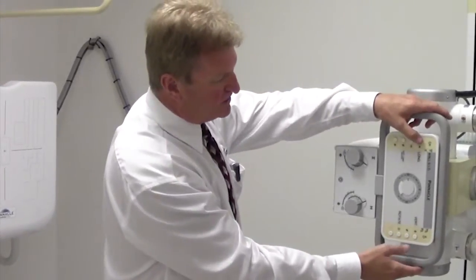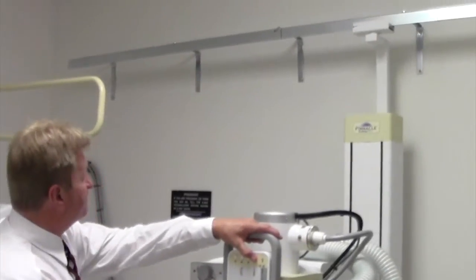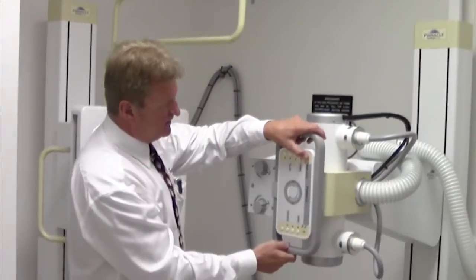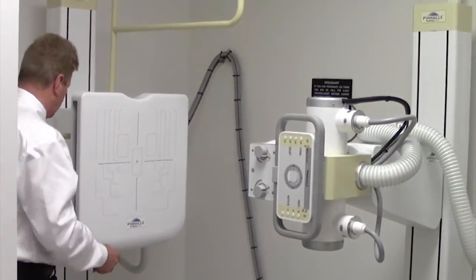If lumbar spines, hip, knee, and other studies are done at 40 inches, for this you simply move the tube stand in to 40. The LED indicates that you're at 40 inches. You can do any upright study here.